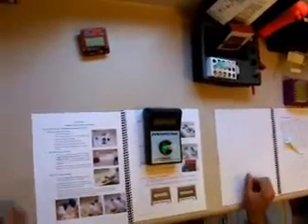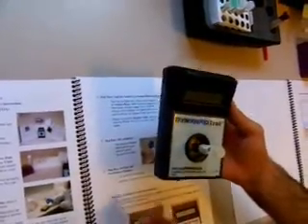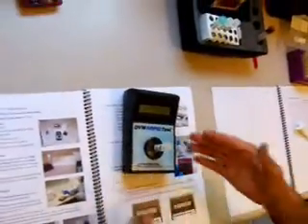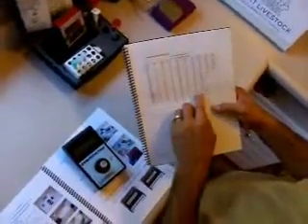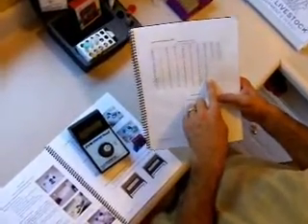Insert your sample and it says 'reading sample, please wait,' then the unit comes back with a percent T as shown on the screen — it says 24 percent T. Take that number and refer to your DVM rapid test data manual: on page 5 is the camelid chart. Look for your 24 percent T and that tells you the IgG level of your newborn cria is 1393.